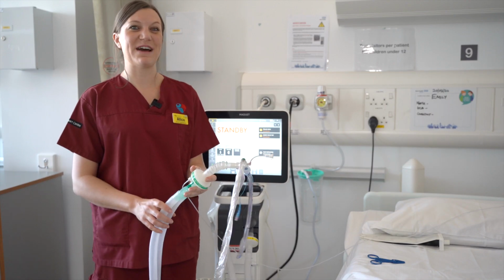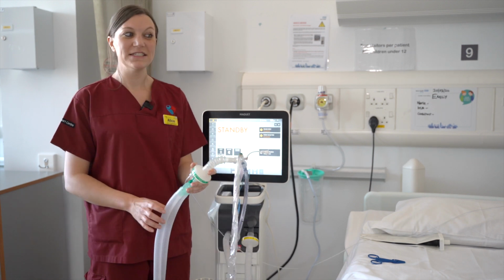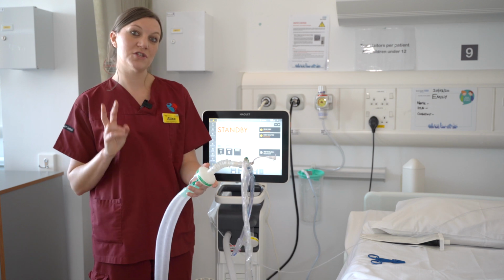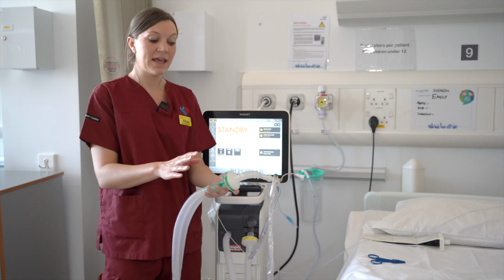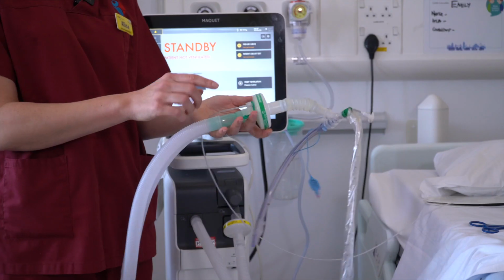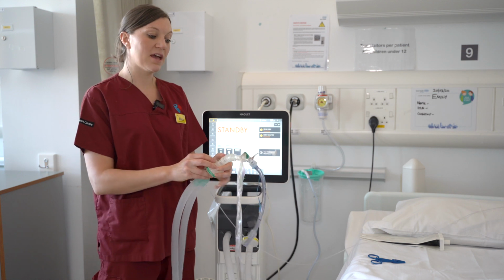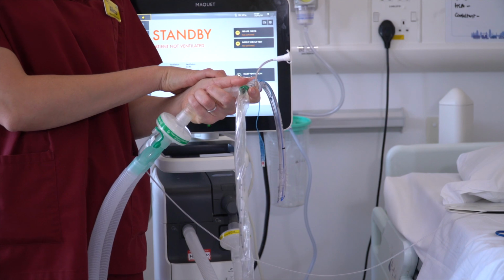So we're going to talk about the basic ICU ventilator and the ventilator circuit. ICU ventilators have a double limb circuit, one expiratory and one inspiratory. You have two filters. You have one bacterial filter at the ventilator and one heat moisture exchanger, a HME. Here you attach the end tidal CO2 monitoring, which goes to the monitor at the wall. From here you have your closed circuit suction attaching to your endotracheal tube, which is cuffed.